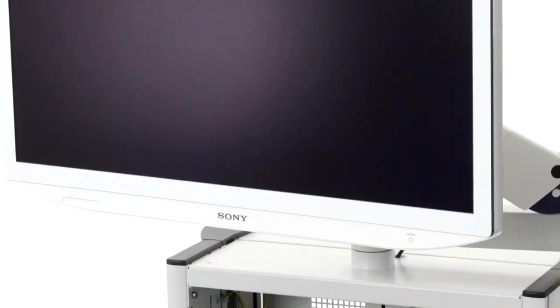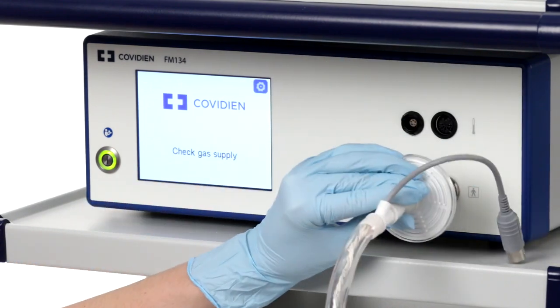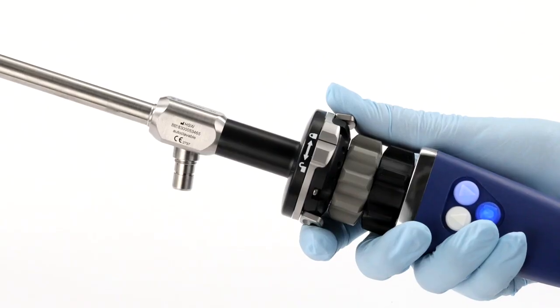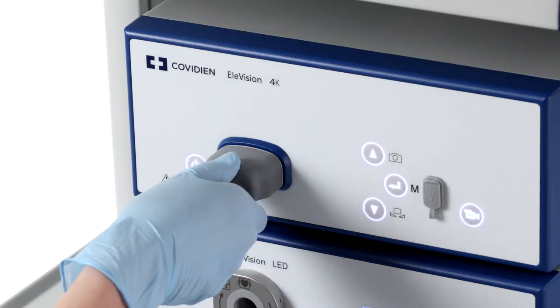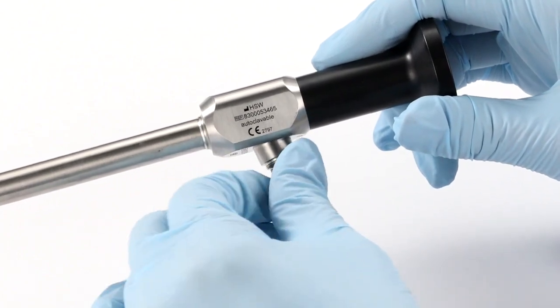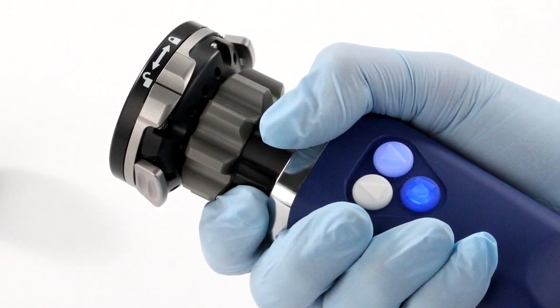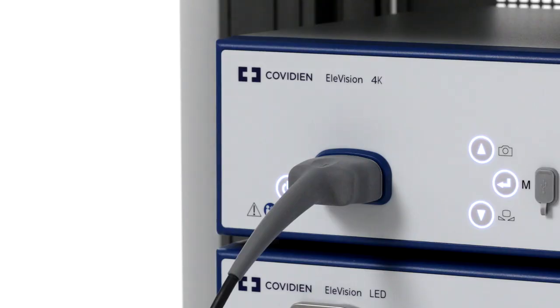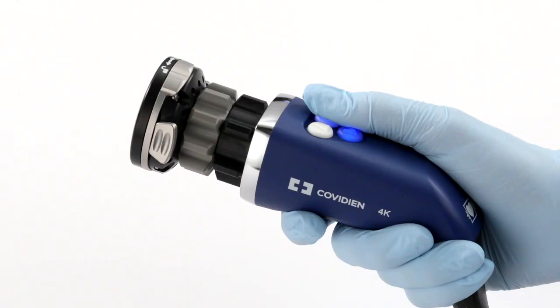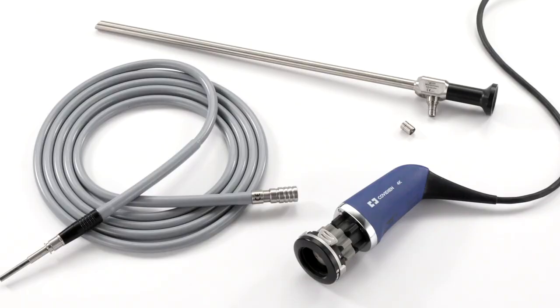Keeping your Elevision 4K Plus platform in great condition and providing safe and high quality patient care requires ongoing cleaning and sterilization. After using the platform, you'll need to prepare the components for reprocessing. Remove and discard the insufflator tube set, filter, suction irrigation tubing, and any protective sheathing or sterile draping you may have. Uncouple the laparoscope, camera head, and light guide, and detach all detachable parts, including the light guide adapters. Remember that the endocoupler is permanently attached to the camera head and should not and cannot be detached during the cleaning and sterilization process. Disconnect the camera head and light guide from the CCU. Look at the device and remove all visible surgical residue using a moist lint-free wipe. Arrange for reprocessing of the light guide, laparoscope, camera head, and adapters if used.